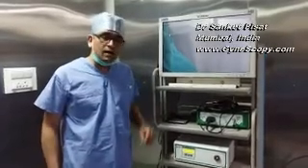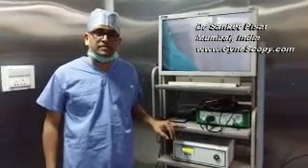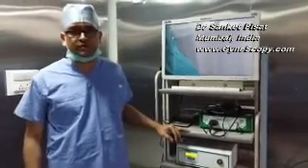Hello everyone. Today we are going to have a video on how to check preparedness of the operation theatre before doing any standard endoscopic surgery.